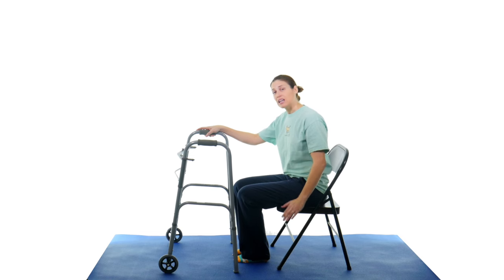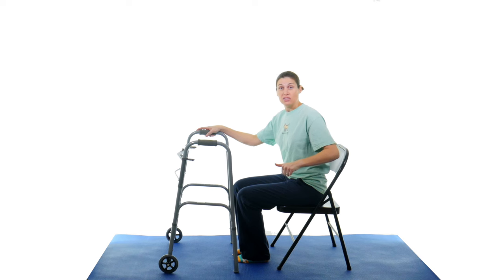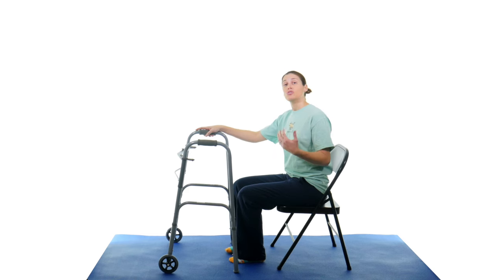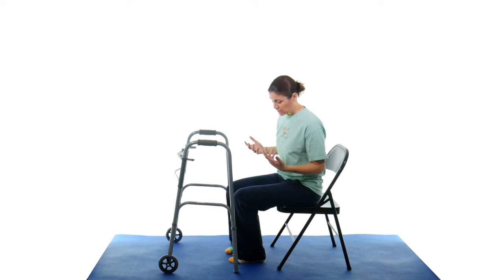Then use the other hand either on the edge of the seat or again the armrest is usually the best if you're in a chair with armrest, but obviously not all chairs have armrest, so that's why I'm doing it without one so you can see it. So you still want to do how you would get up normally and I have some videos for that, the safest and easiest way.